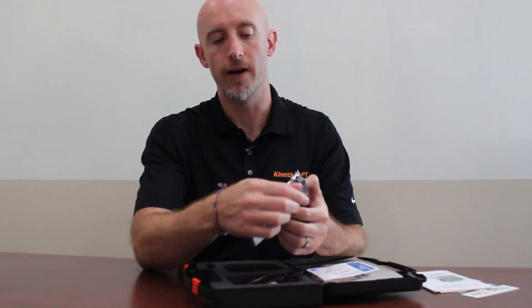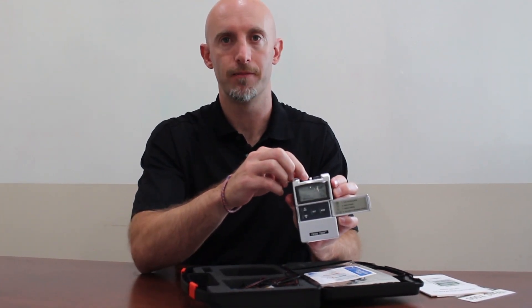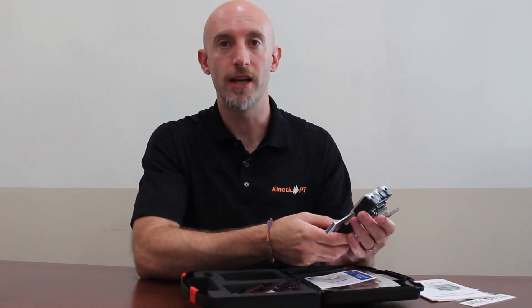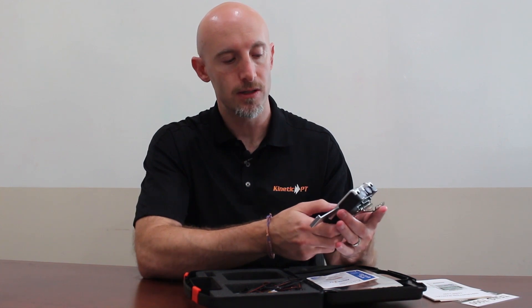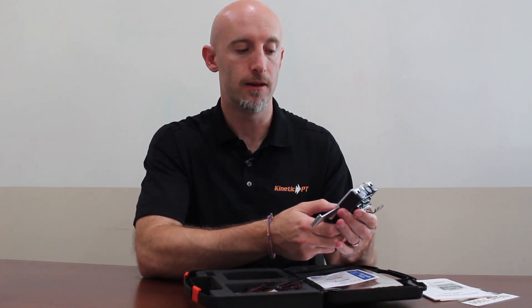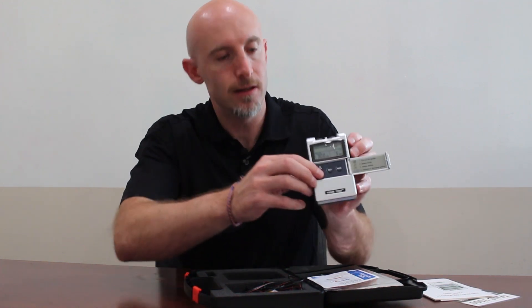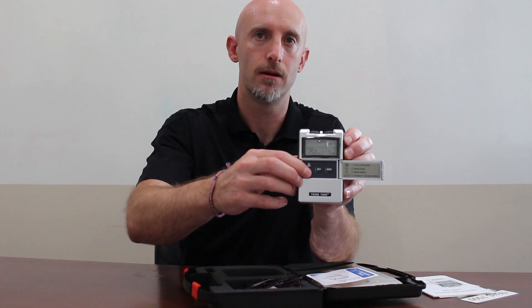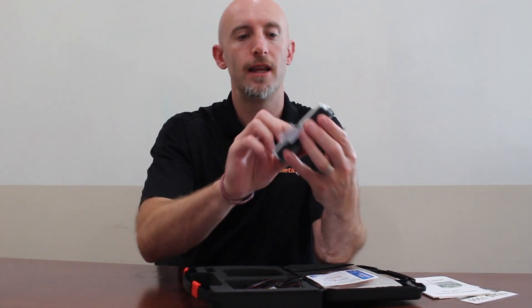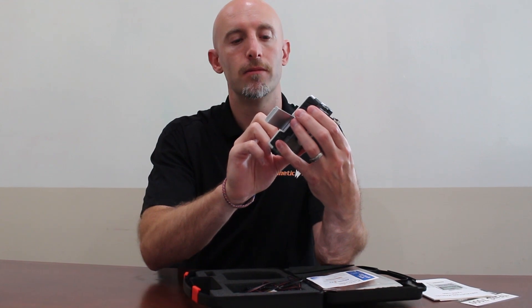How we turn on the device is up top — that's how we turn it on. Once we turn it on, this will be preset for you at our clinics. We want to have the width set between 250 and 300. I'll press set, move it down as the number drops, and set it at 250. Then we hit set again.